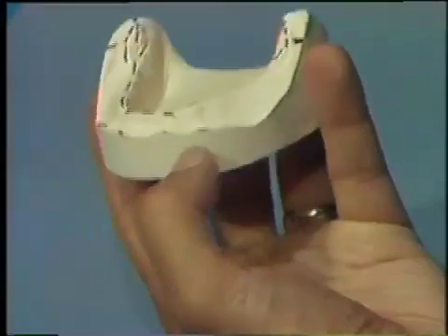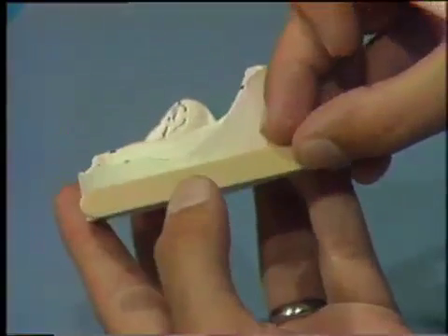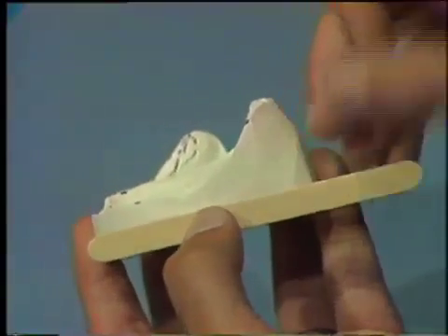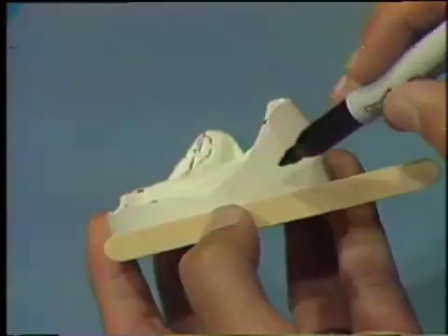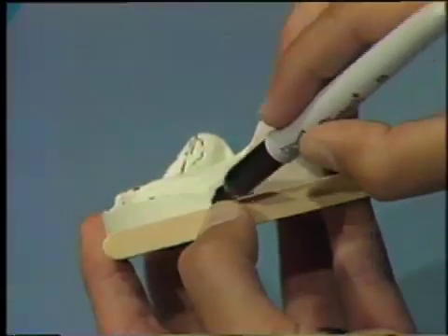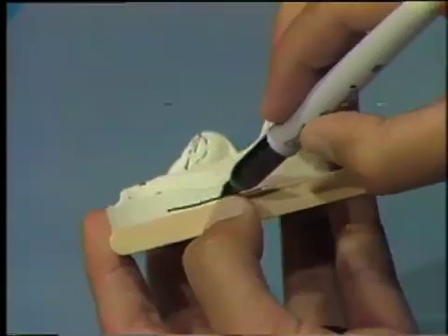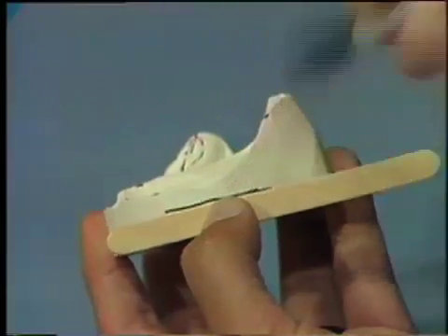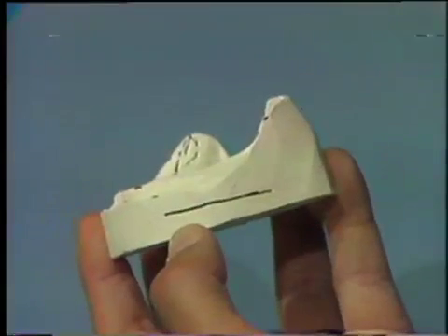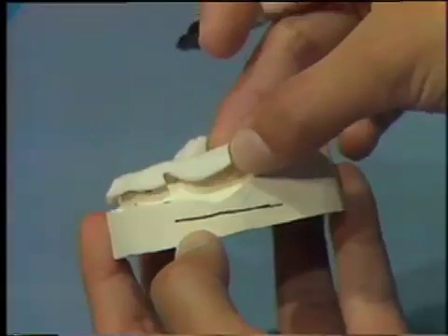Near the base of the cast, draw a line on each side parallel to the mean of the residual ridge. These marks will help in determining the height for the rim and in positioning it parallel to the ridge.